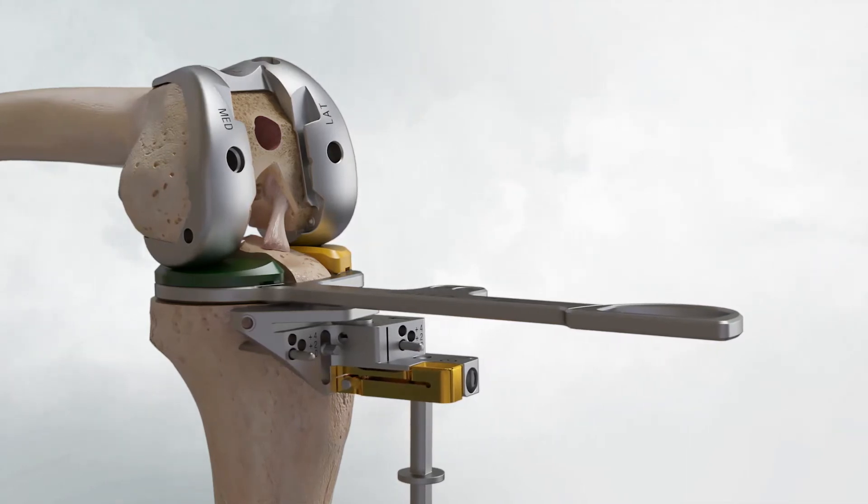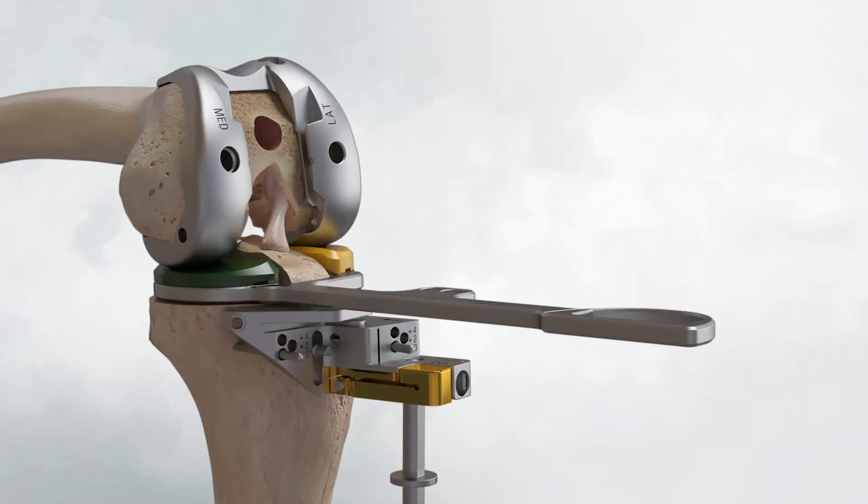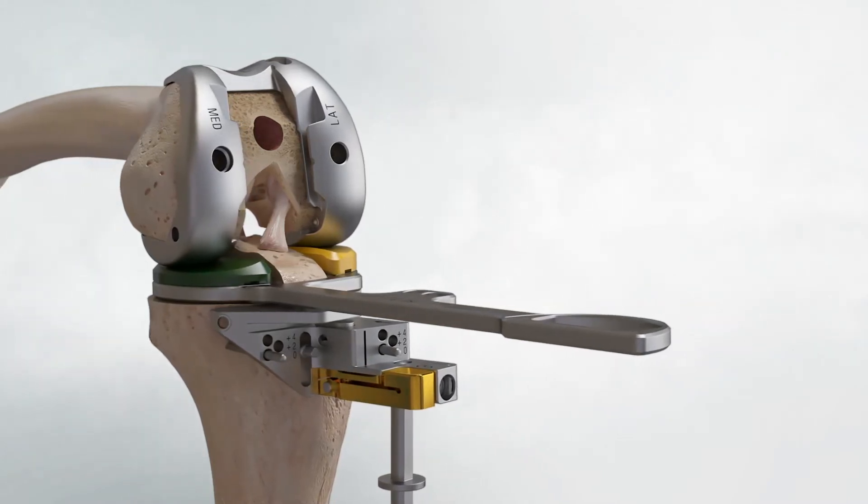Assess knee stability: anterior-posterior, medial-lateral, internal and external rotation to ensure sufficient ligament function.